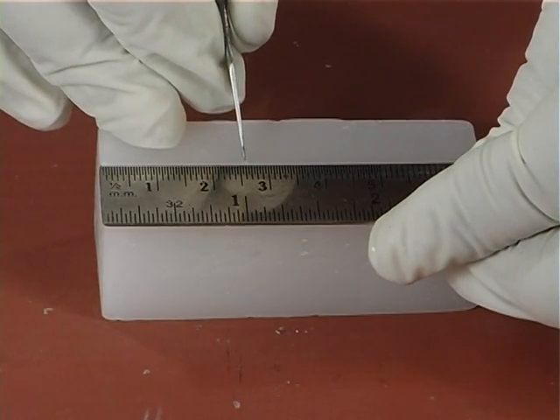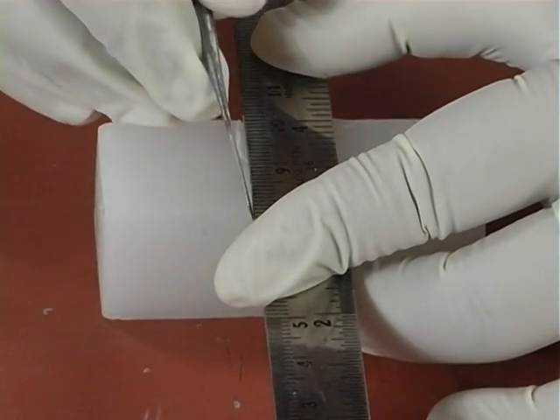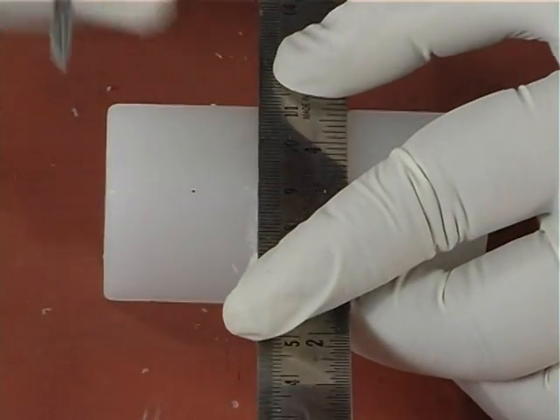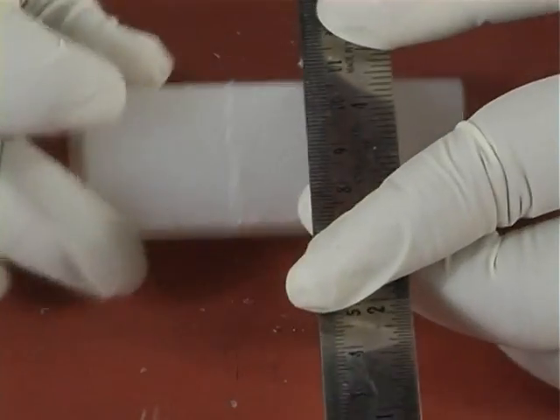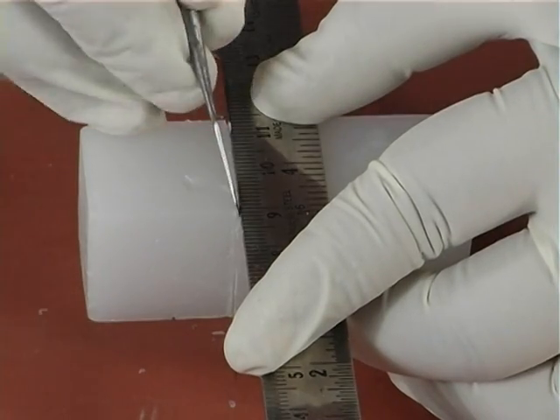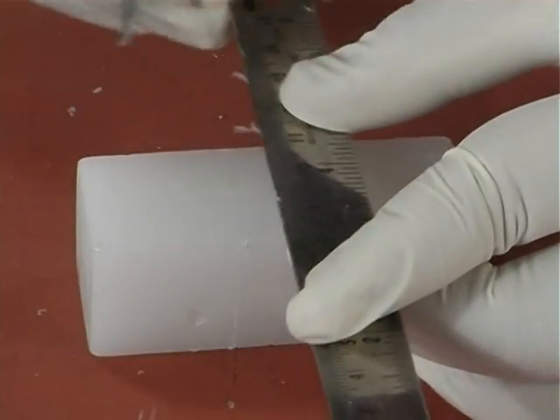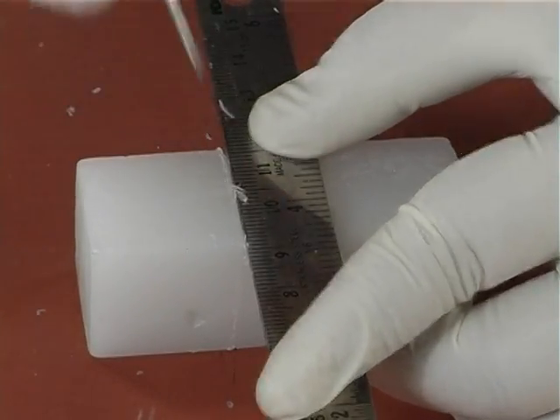From one end of the wax block, measure 26 mm using the metal scale and mark it using the wax carver. Then draw lines parallel to the edge of the block on all the 4 surfaces exactly at the same measurement. This line corresponds to the cervical line of the tooth. The 26 mm part of the wax block is used for carving the crown part and the remaining part is used for carving the root.